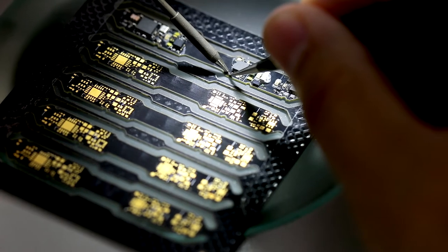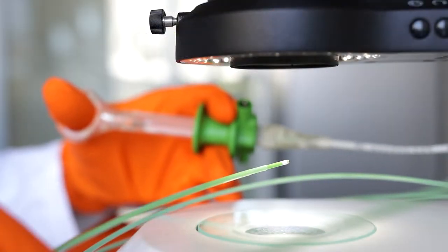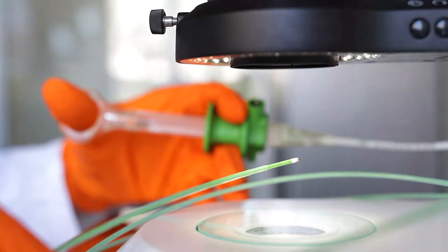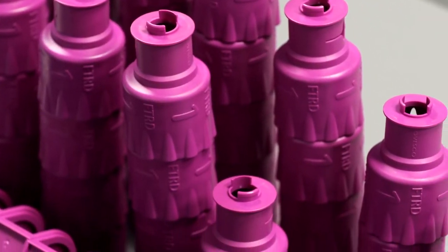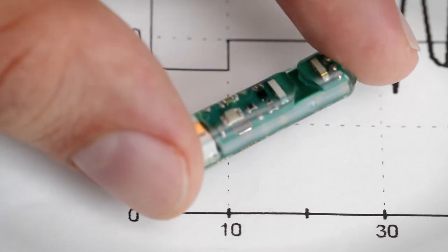Over the years, our portfolio has been expanded through optimized resection techniques like FTRD and Resec Plus, and also diagnostic tools such as Hemopill and robot-assisted systems.